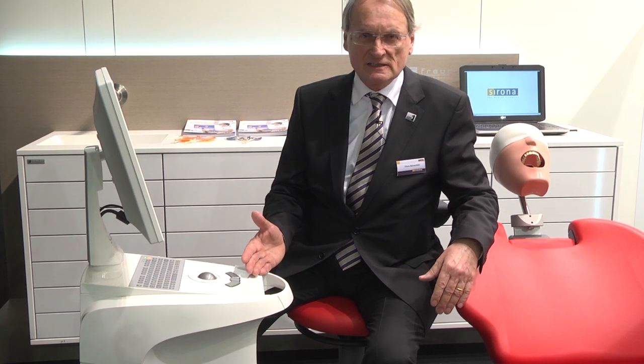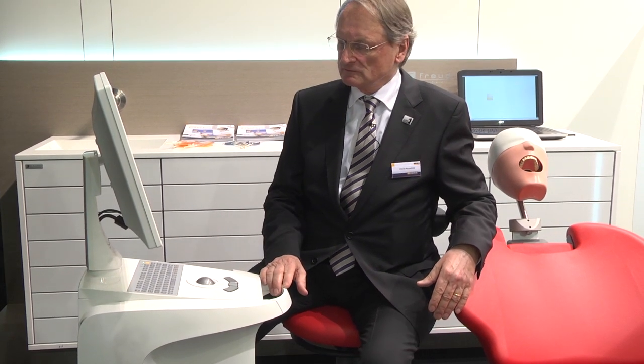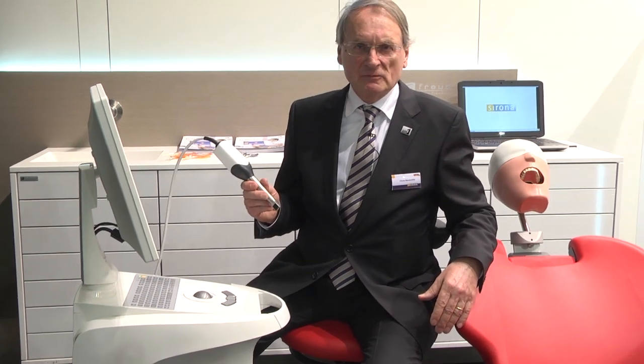In order to successfully implement PrepCheck, I need the hardware. I need an acquisition unit called CEREC AC with the new software 4.2. I need either the Omnicam, the new camera, or the Bluecam — both I can make use of. And I need the PrepCheck master software.